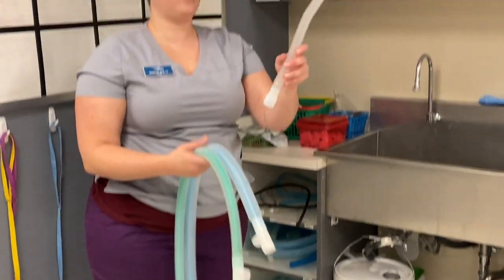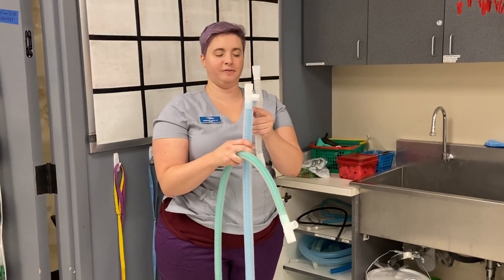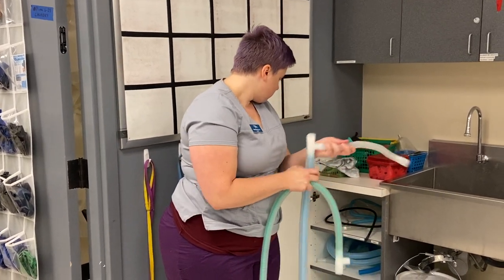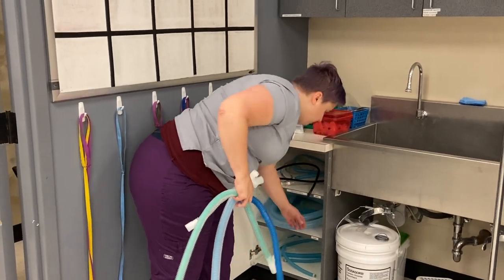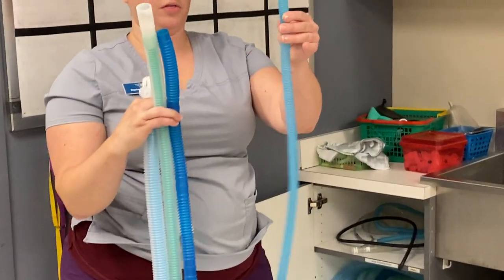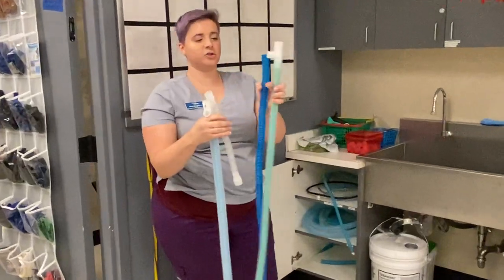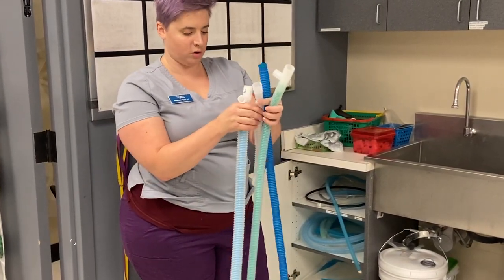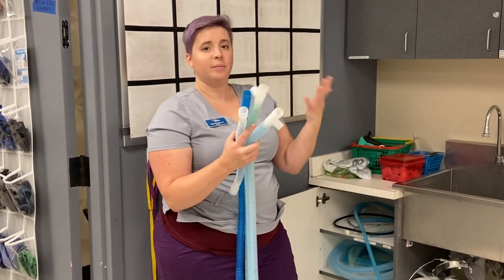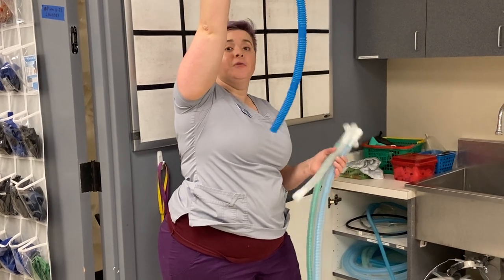You then need this little connector, because I have one connection here and I need to connect it to the other side — that's what this adapter is for. I also need a scavenger tube; these are always blue, and you should pick the appropriate diameter. The thinner ones are for non-rebreathers, so I'm going to pick the larger diameter one to match. Scavenger is always blue, much like oxygen will always be green. Some clinics with active systems will have these blue tubes hanging from the ceiling.